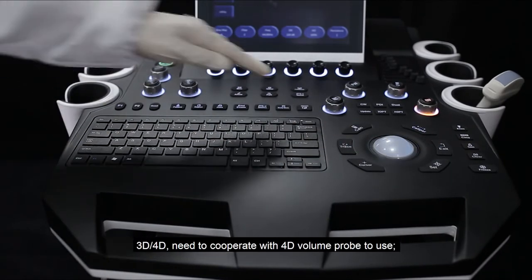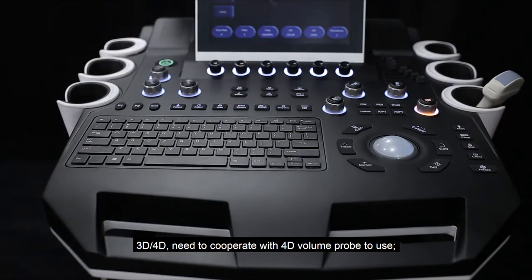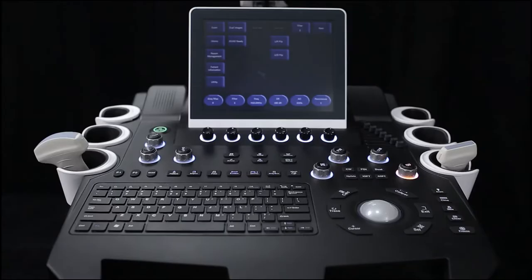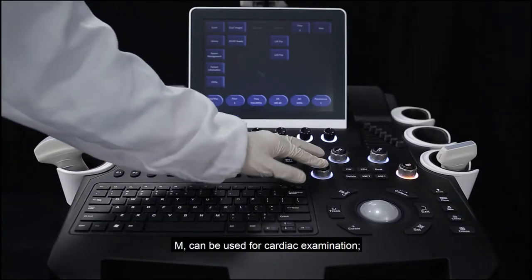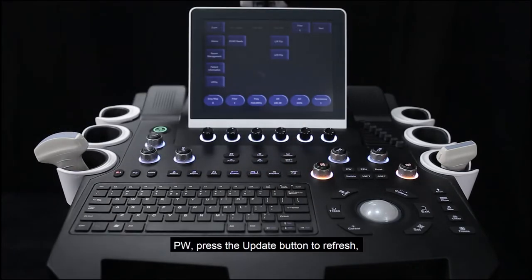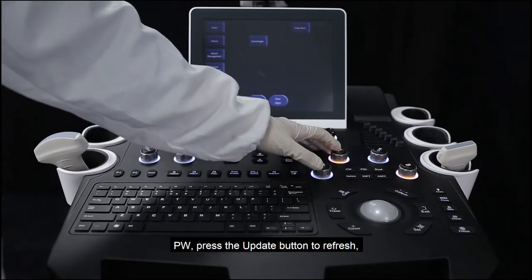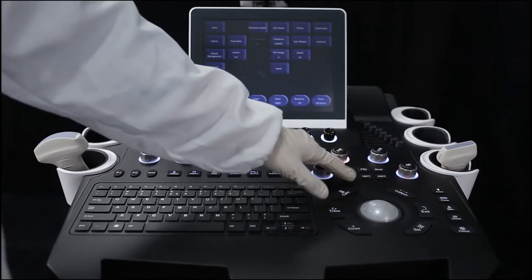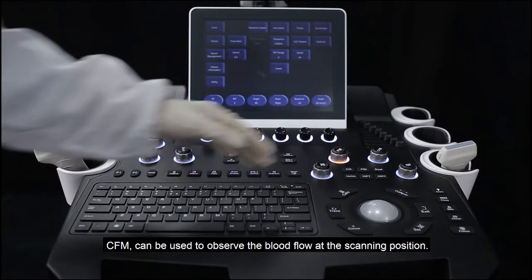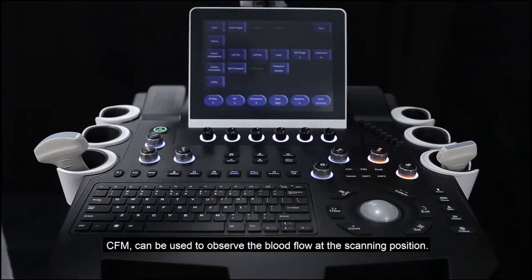3D and 4D modes require a 4D volume probe to use. M mode can be used for cardiac examination. PW mode: press the update button to refresh and obtain the blood flow spectrum. CFM can be used to observe blood flow at the scanning position.